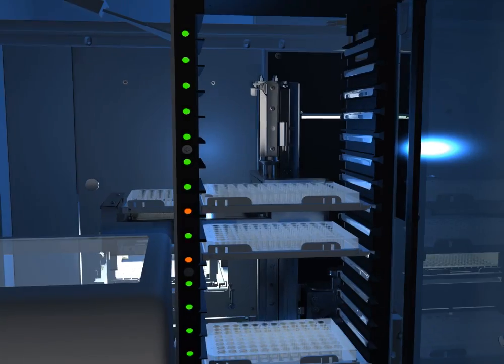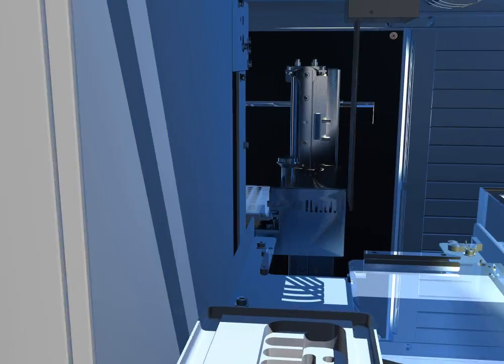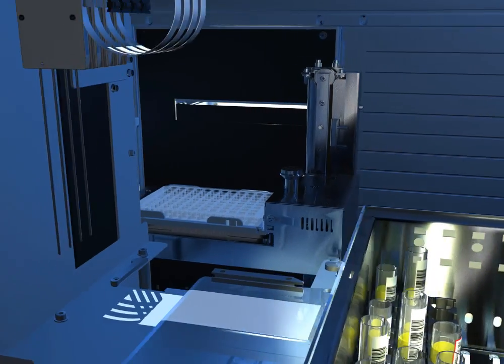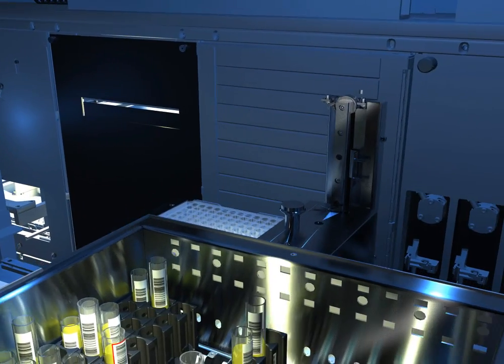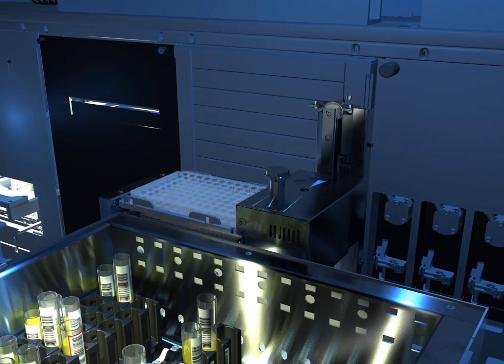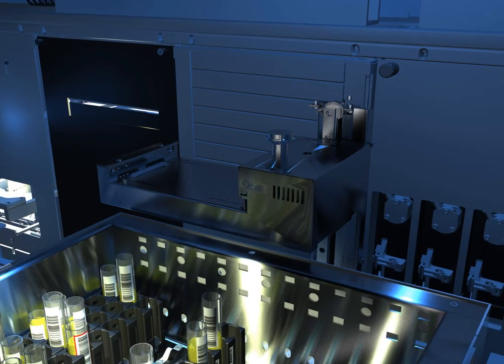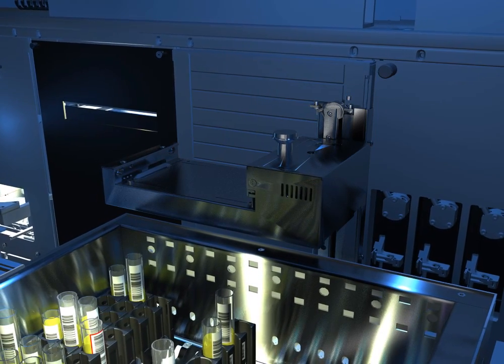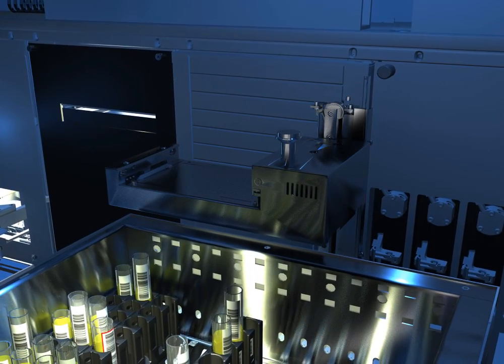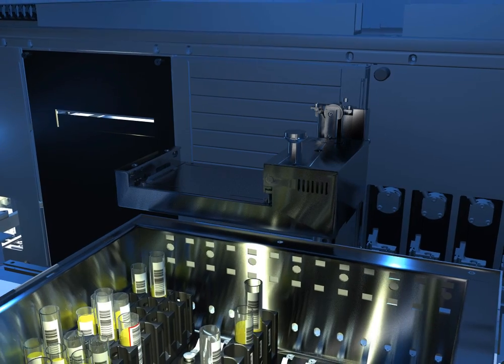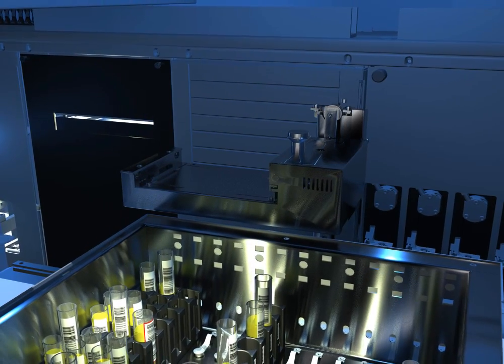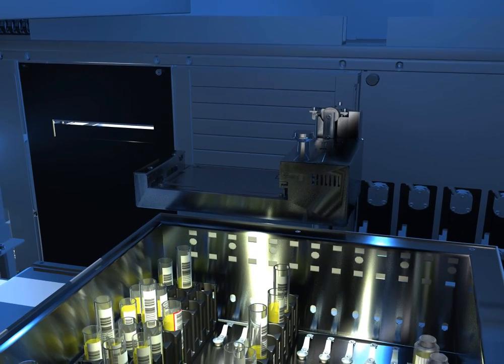Behind the pipetter, there are 15 slotted doors. This is NEO's incubator module. There are 15 separate incubators. Eight incubators are maintained at 37 degrees Celsius, six are at ambient temperature, and one is a buffer position to maintain the integrity between the two temperature zones.